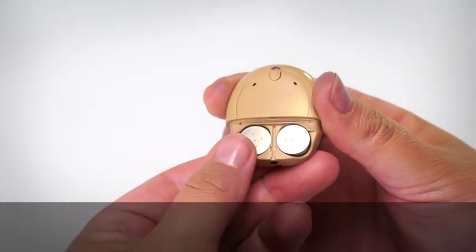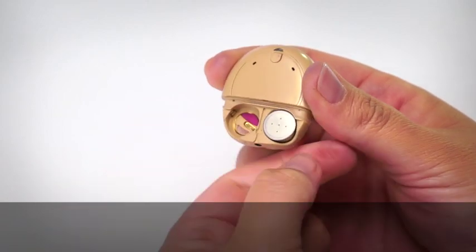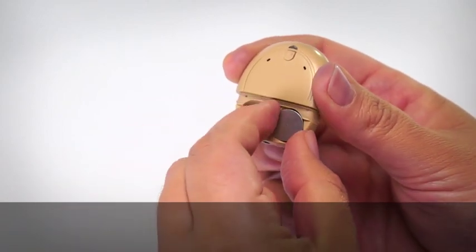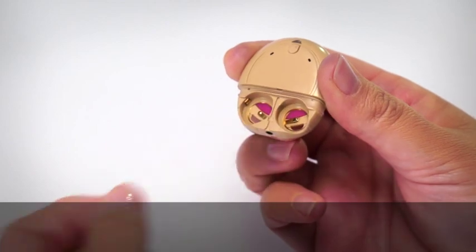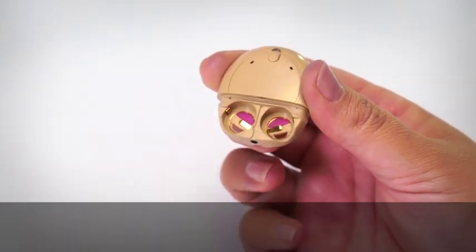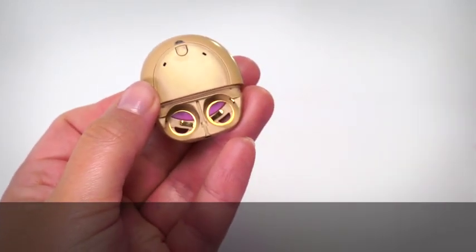The Aqua Plus for Kanso should only be used with specific batteries described in your user guide. Change your Zinc Air batteries to a battery type that can be used with Aqua Plus.